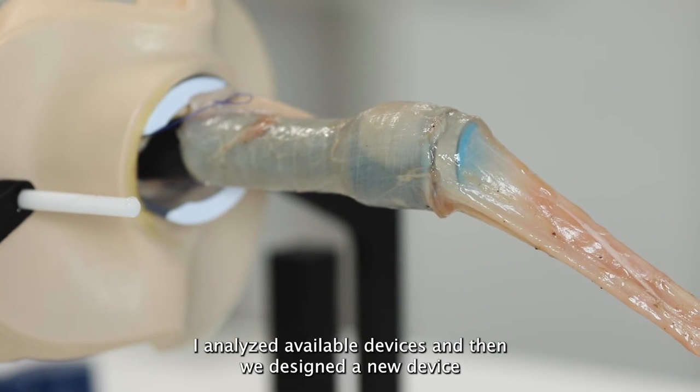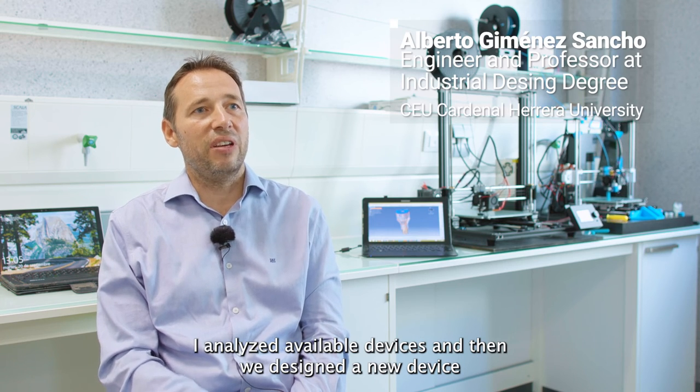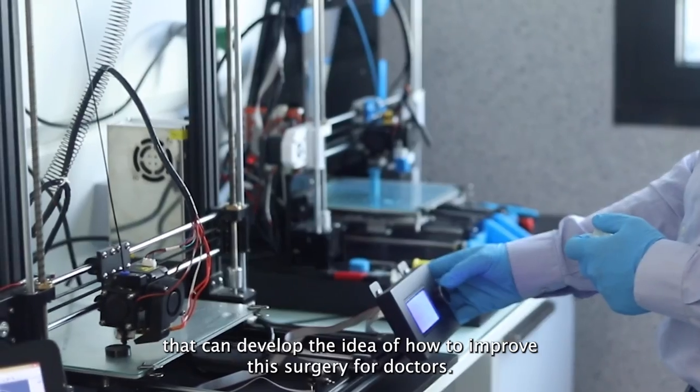I analyzed available devices and then we designed a new device that can develop the idea of how to improve this surgery for doctors.